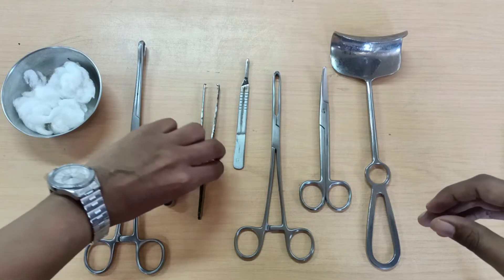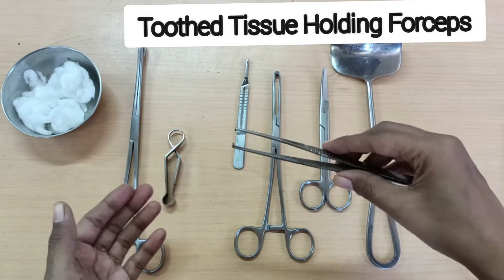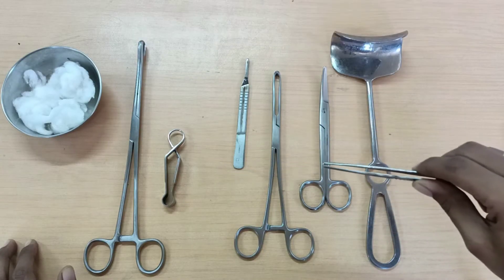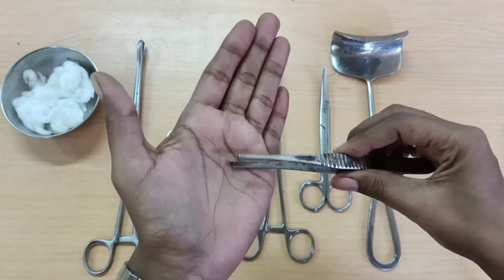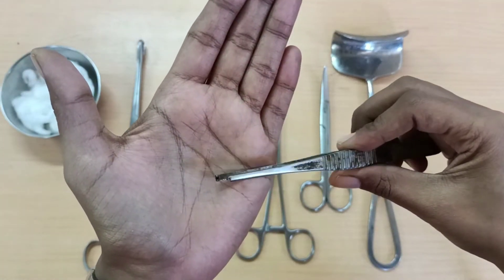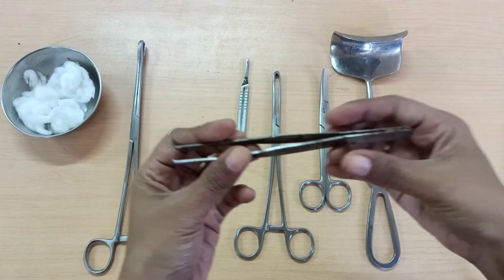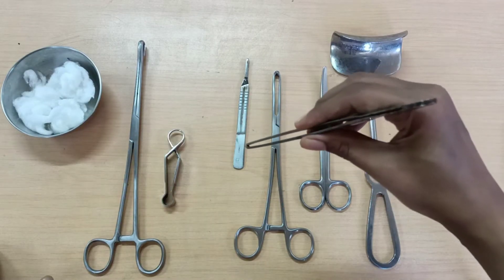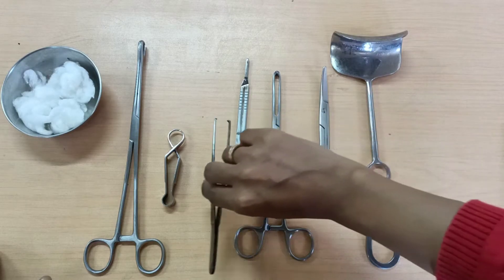Next you are going to require a tooth tissue holding forceps, basically for grasping the skin and checking the effect of anesthesia. It has a tooth at its working end — you can see a 2-into-1 tooth — and it works with a spring action. You check for the effect of anesthesia.